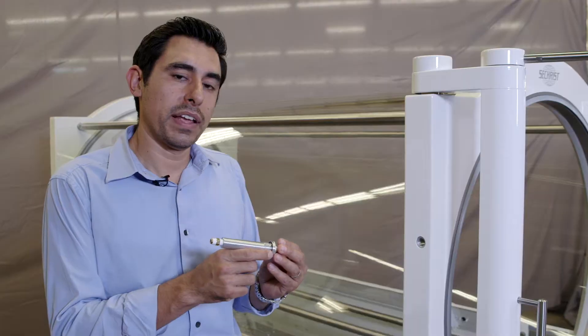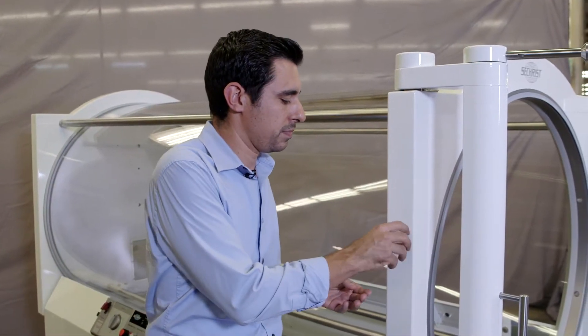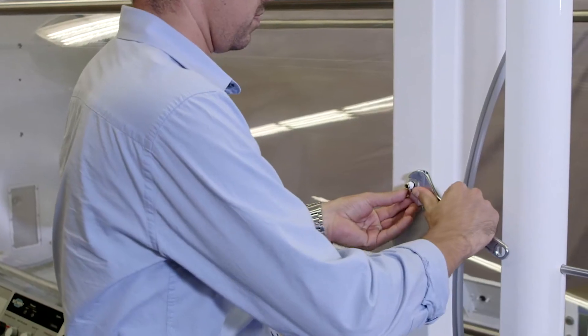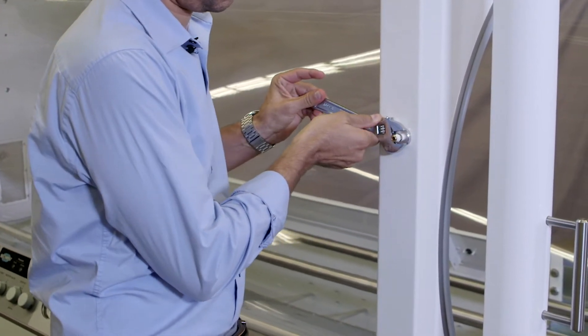You want to verify that your O-ring is installed, then insert into the door ring, begin threading manually, and use a crescent wrench to finish installation.